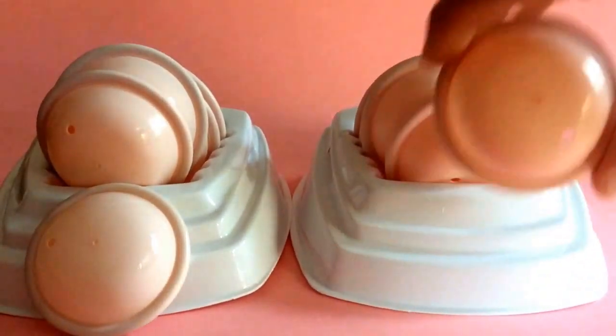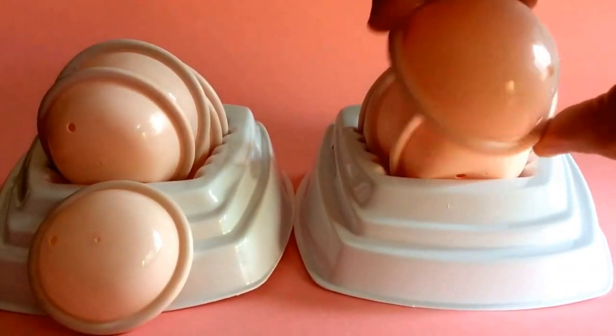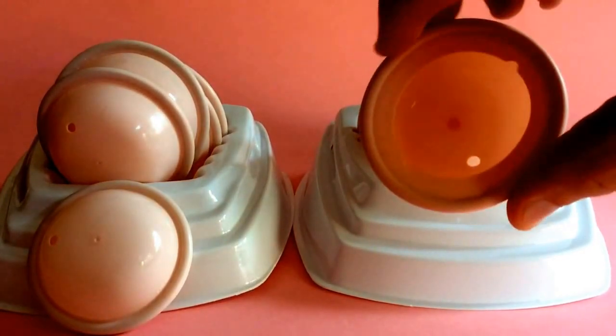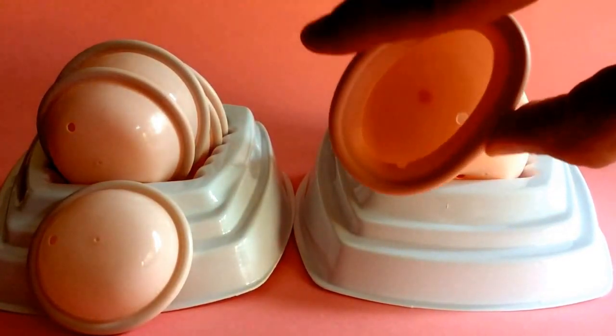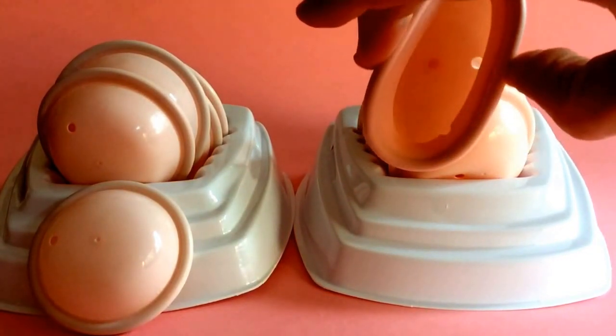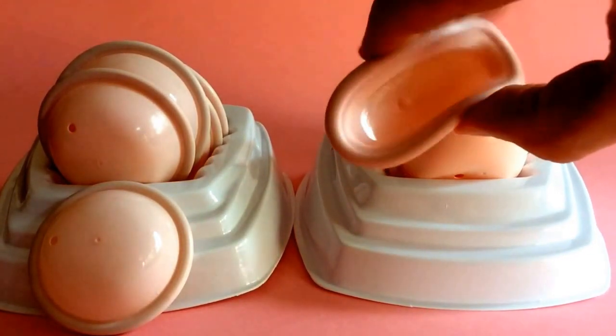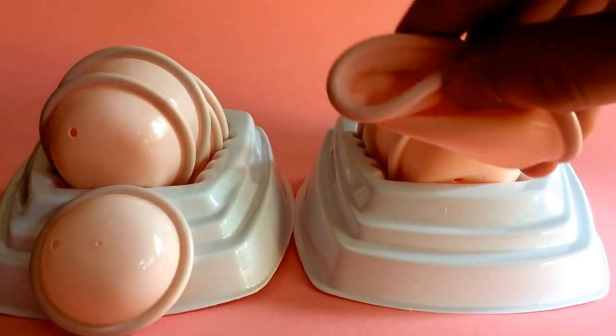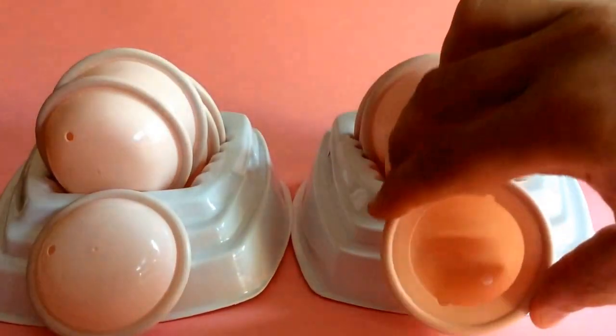The main difference really is the spring. We're talking about sheets of latex laid over springs — that's what a diaphragm is. The spring used in the OmniFlex: to give you a clear view it's easier from behind. You can see that you can pretty much fold the OmniFlex diaphragm however you want, allowing for very easy insertion.